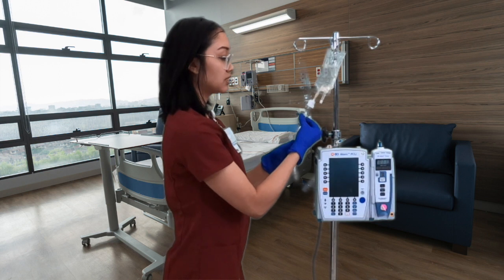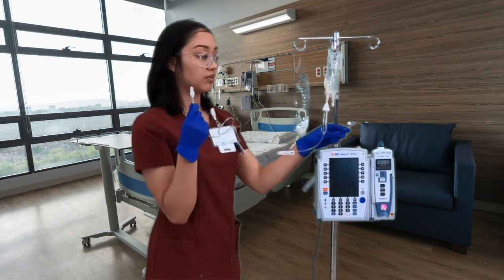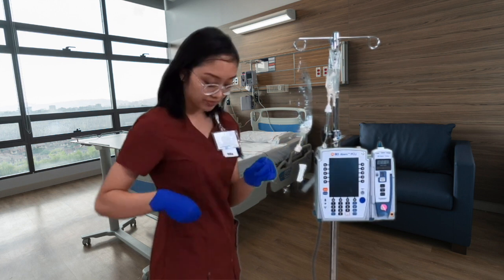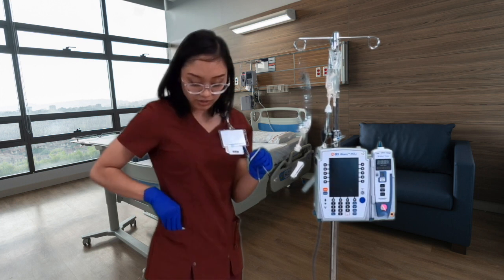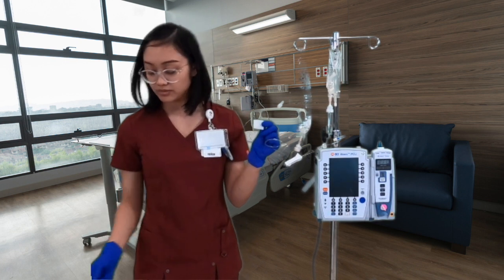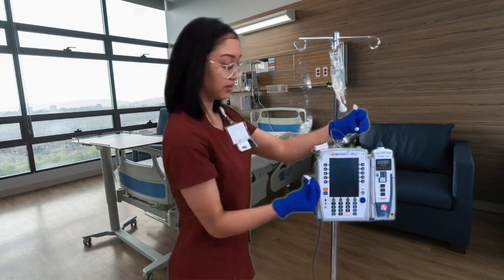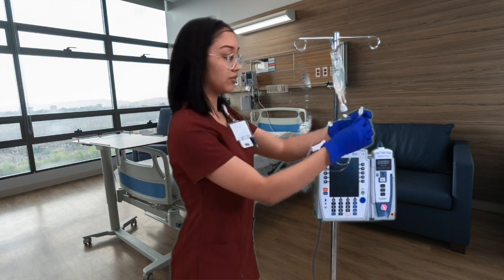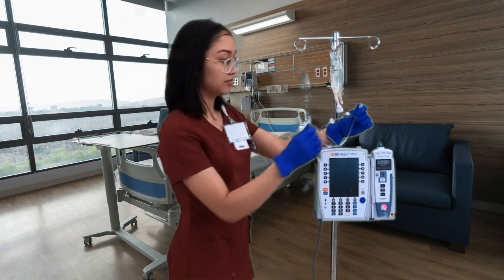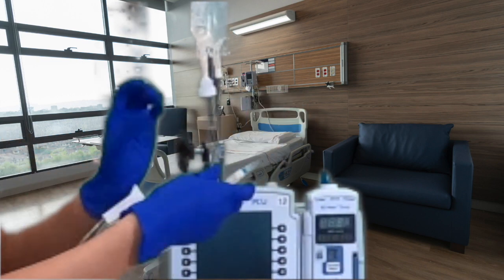Squeeze the chamber two times — we have good fluid flow. Now I want to connect this secondary line to our main primary tubing. We don't just connect it directly because people may have touched it, so clean the port first with an alcohol swab, then discard the swab. Remove the cap from the secondary line — it should be a twist-on — and then attach it. Now we are connected.